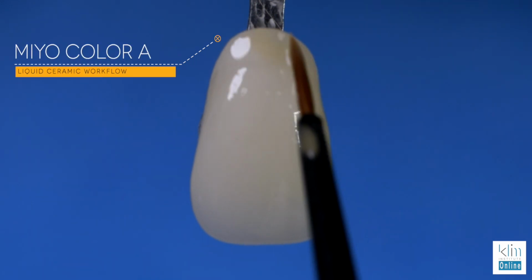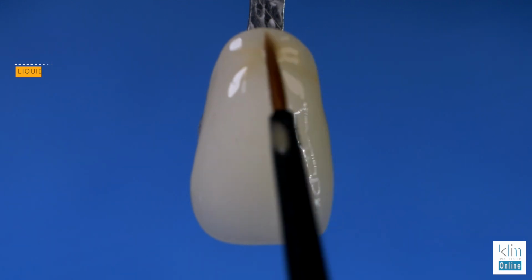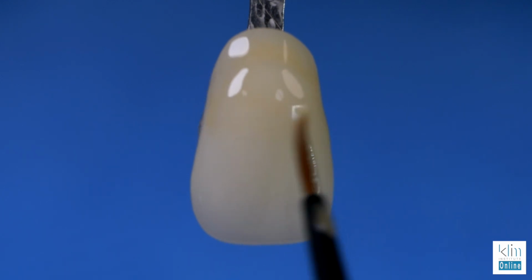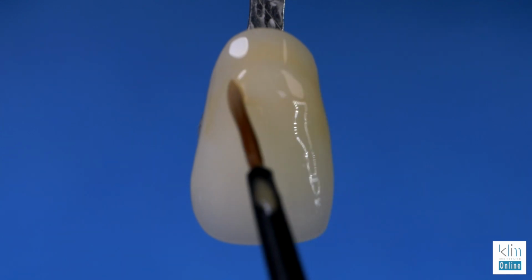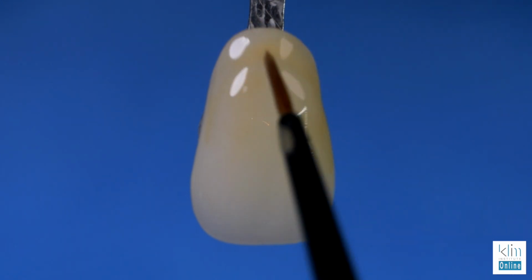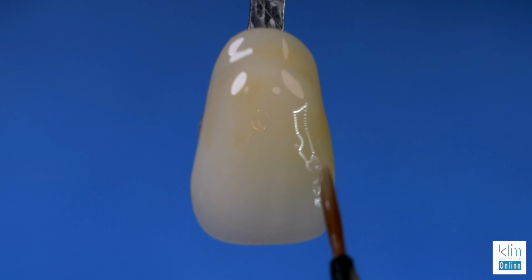Our first technique here is using a dentinal color. In this case, it's A. Notice the technique. We're taking that, rather than brushing it into the liquid ceramic of the glaze underneath, we're floating it across a lateral stroke. And then once you place that color, you'll see it start to dissipate. And then you'll use the tip of that brush and lightly dab that surface, particularly here. You just watch how it changes colors on you and it dissipates out and it looks good.